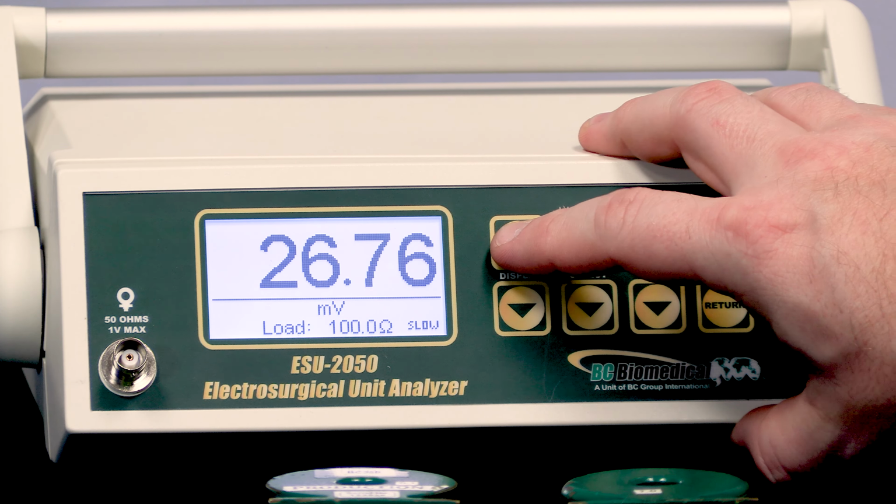So we can see this quick configuration screen that shows me the selected current transformer. Note that we have both a 0.1 and a 1-to-1 current transformer available. And it's important to have this setting set to the correct transformer that we're using. We can scroll down and get to a display with 2 parameters on the screen, 3, 4, or even 5 measurements all at once on the screen.